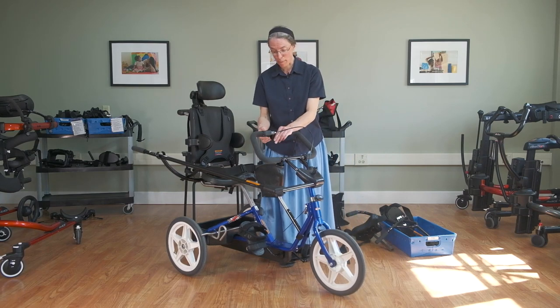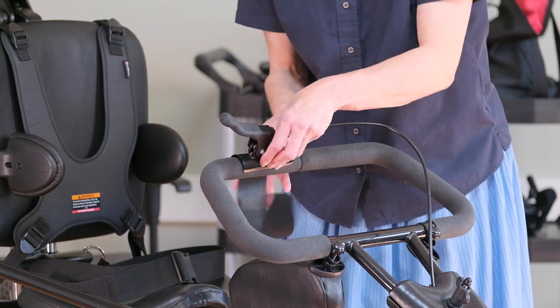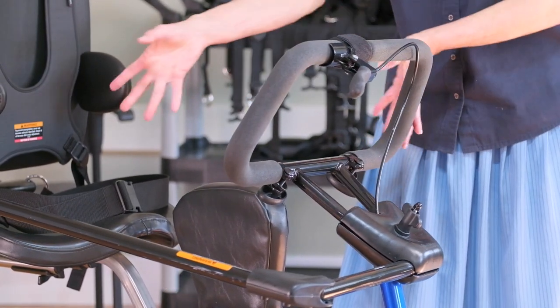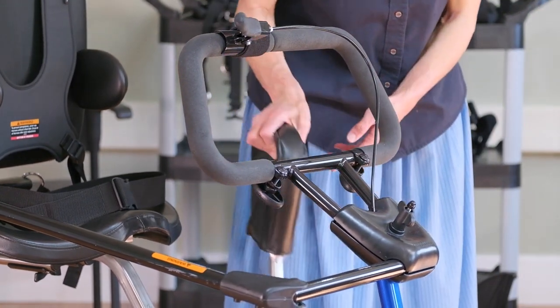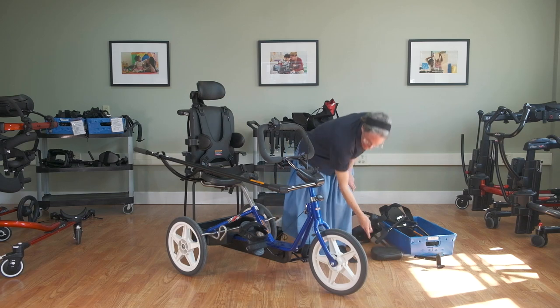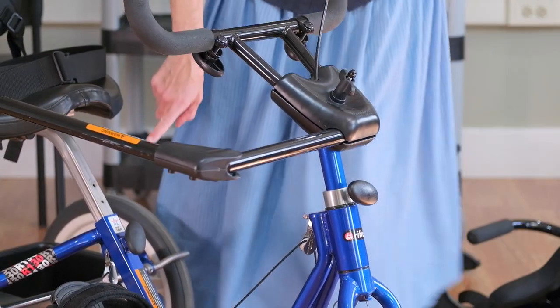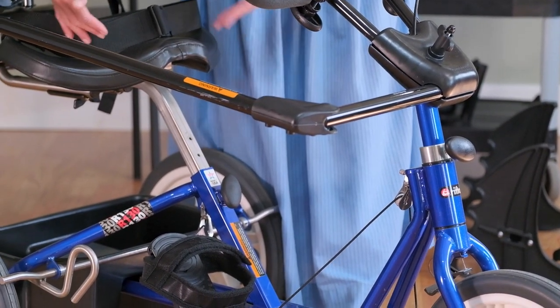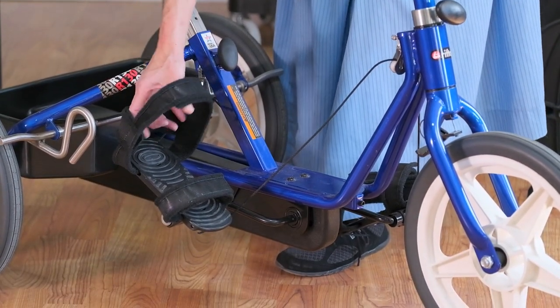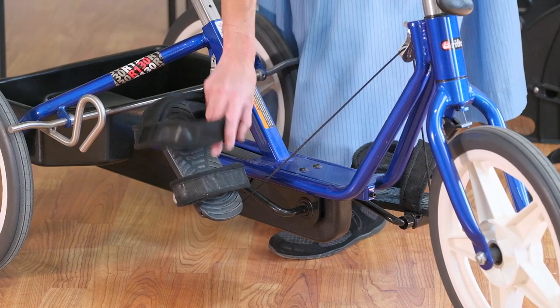For the loop handlebar, it's especially designed so that you can set the handbrake anywhere along the loop — either in reach of the caregiver or the student. The two knobs allow you to flip the handlebar up out of the way, making access easier for transfers. There's also a removable accessory component option for leg separation abductor. This knob raises and lowers the handlebars, while this knob raises and lowers the seat — the higher the seat, the farther back over the large wheels for stability. Foot pedals always come with straps, configurable by crossing or looping around the ankle and toe.